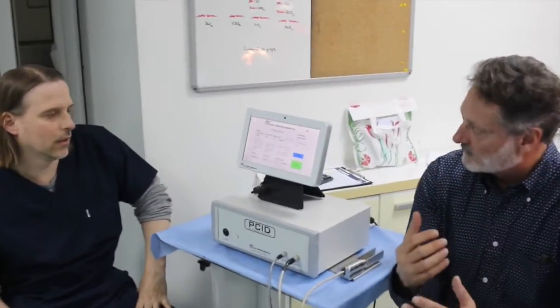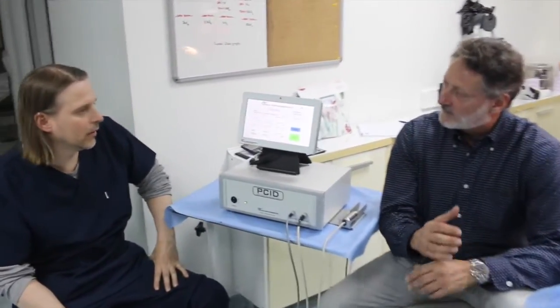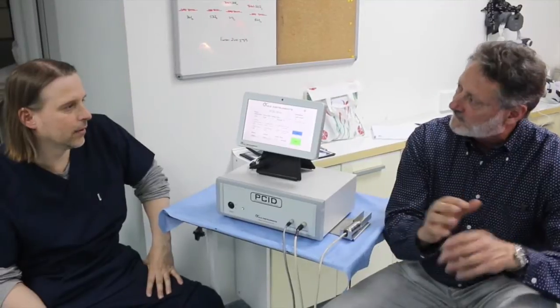Now, we also know that every patient is different. We know that if we are going to be successful in any individual patient, we have to program specific settings for that individual patient. It's really a machine that allows you to program the settings to the optimal settings for an individual patient.